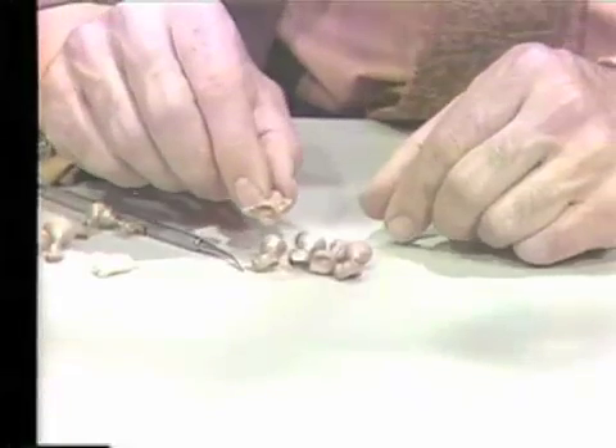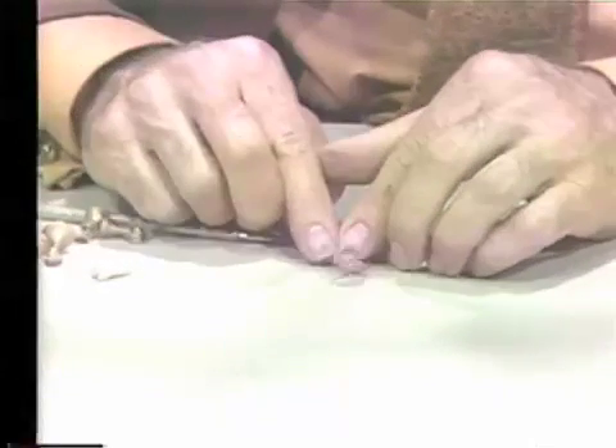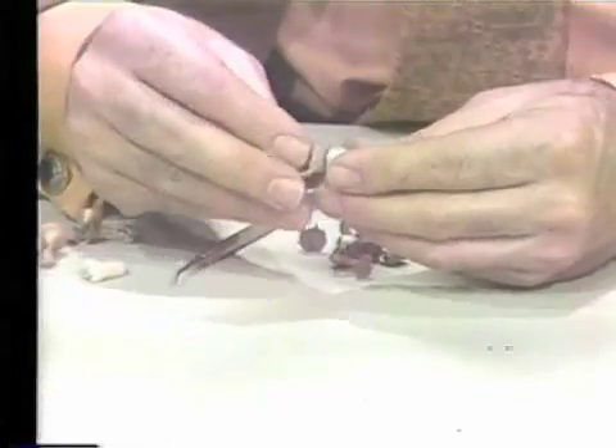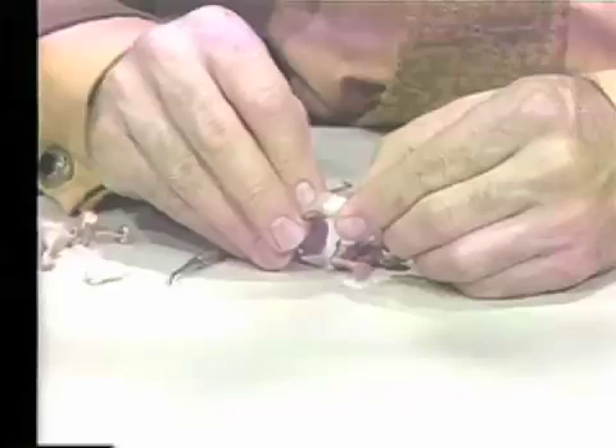One may wish to use a Y-sprue. If you use a Y-sprue, please do not sprue it in this fashion — this is way overdone. The separation of the two parts is much too wide, and therefore the feeding is not quite proper. Furthermore, this was used at 1,200 degrees. If you are going to use a Y-sprue, you can make it fairly decent. Here is another casting that fits well, but once again the oven temperature was 1,100 degrees and the surface is not very good.